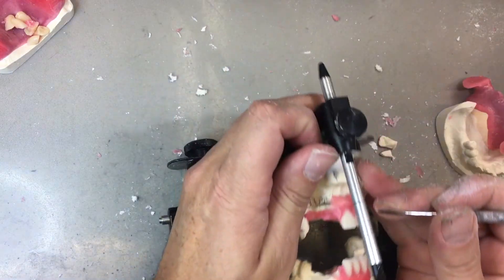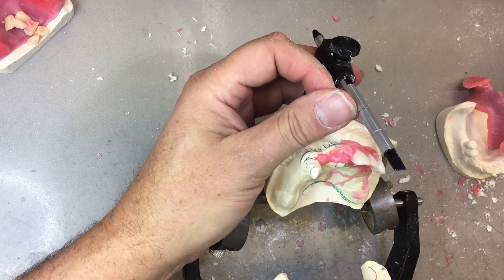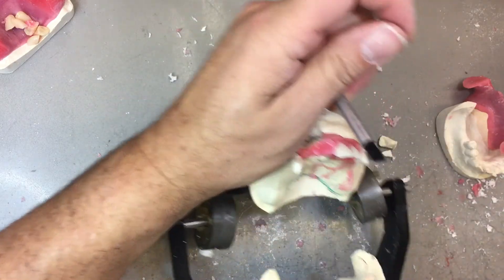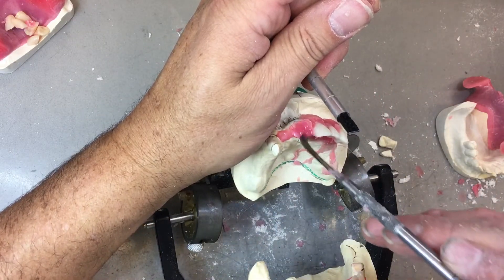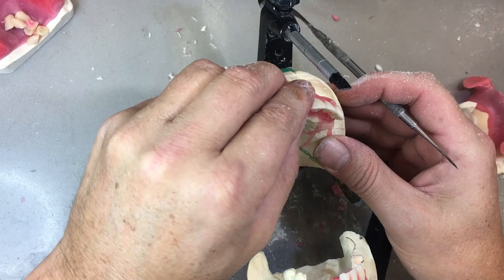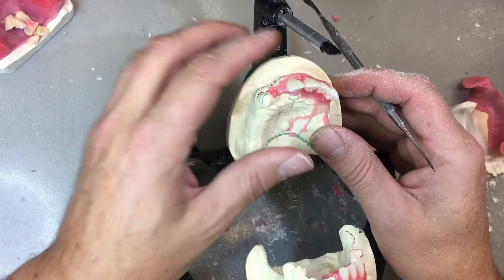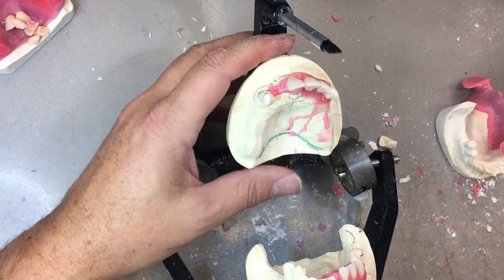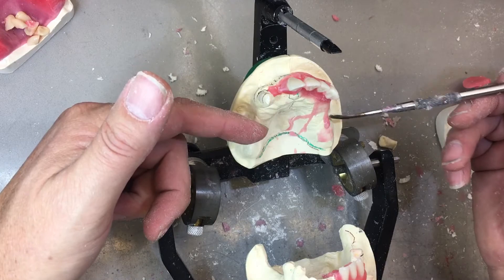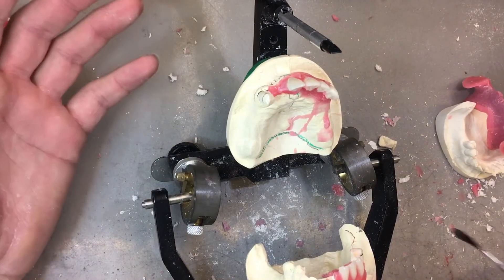Now that I've put this one on here, I'm thinking I'll shift this central over a little bit, but that was my midline. I'll have to go back and subsequently move the lateral and the canine as well. So, the gold standard for immediate dentures: remove the posterior teeth first from the client, let them go three months without anything in the posterior section. Therefore, when an immediate denture is made, we know there's no bone atrophy there — it's already occurred. So now we have a positive seat for our bite registrations and a positive seat for the final prosthetic.